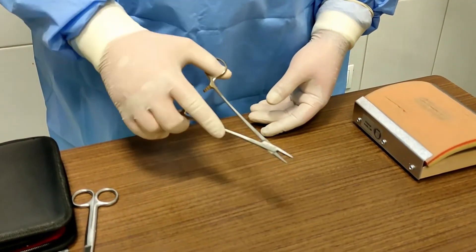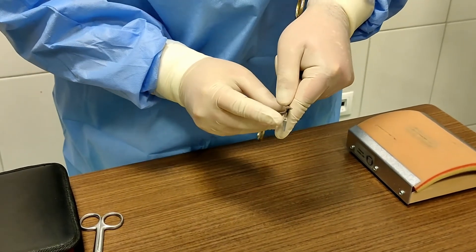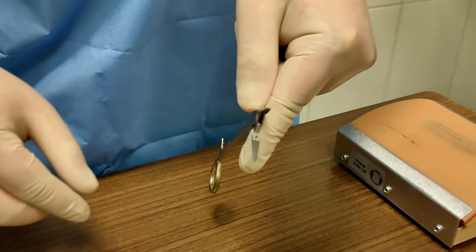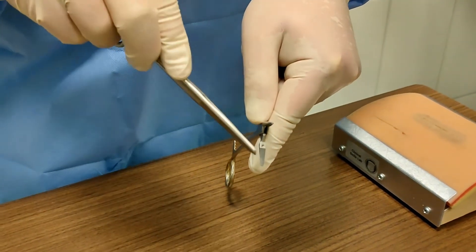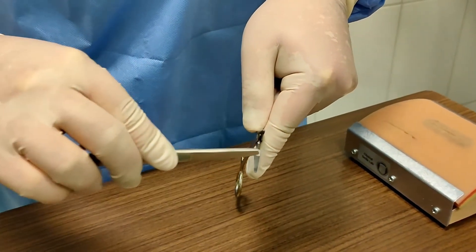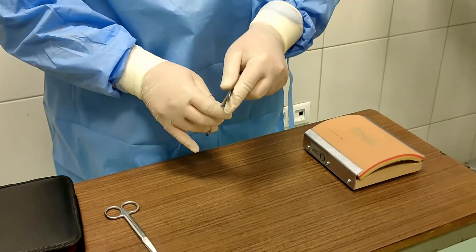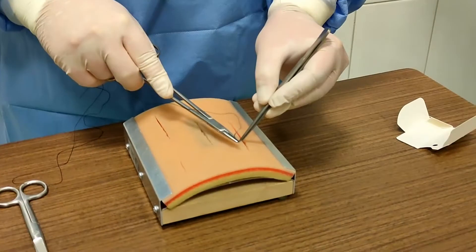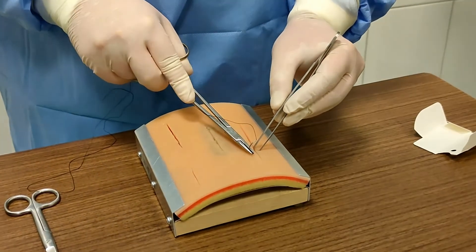Here we have a needle holder, also called a needle driver. It has a flat surface and is used for grasping needles. It also has a ratchet to lock down on the needles. It is held with your thumb and ring finger, while your middle and index fingers are used to control the needle holder.